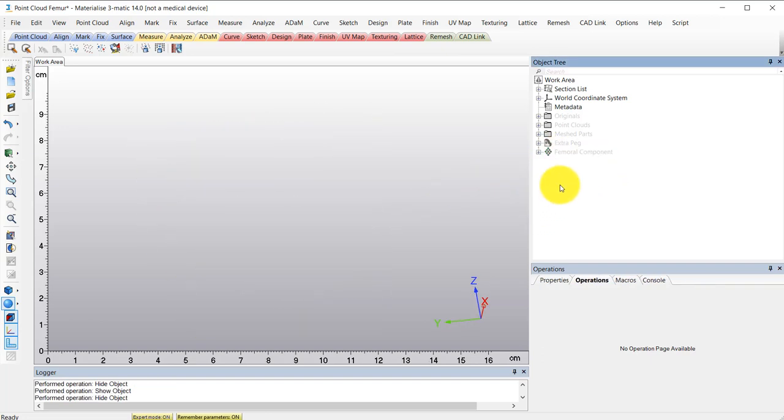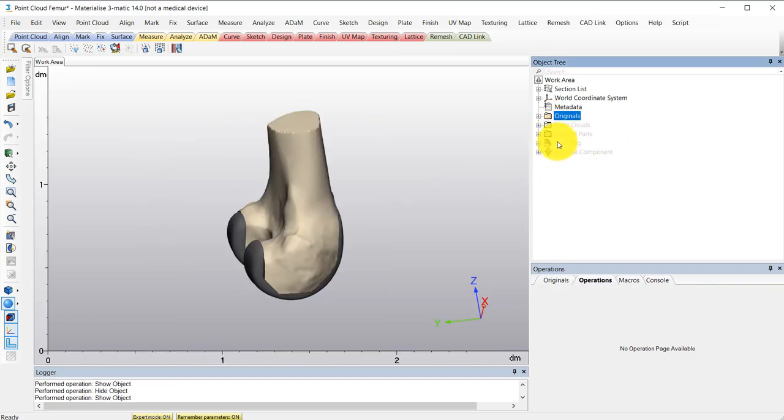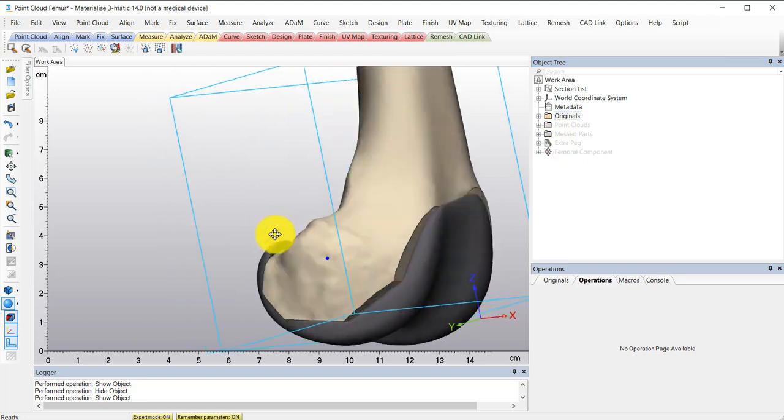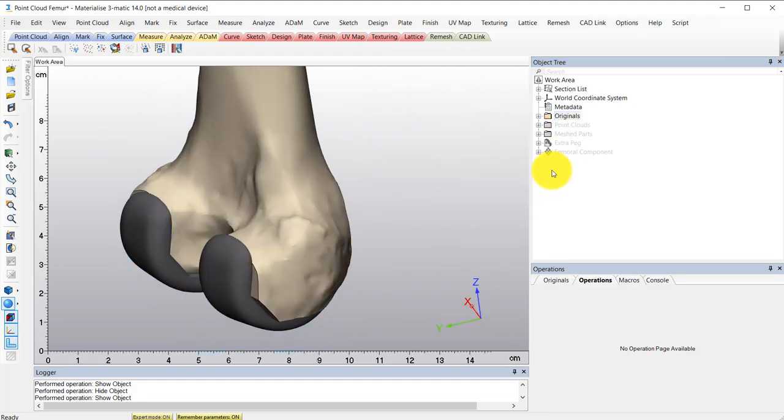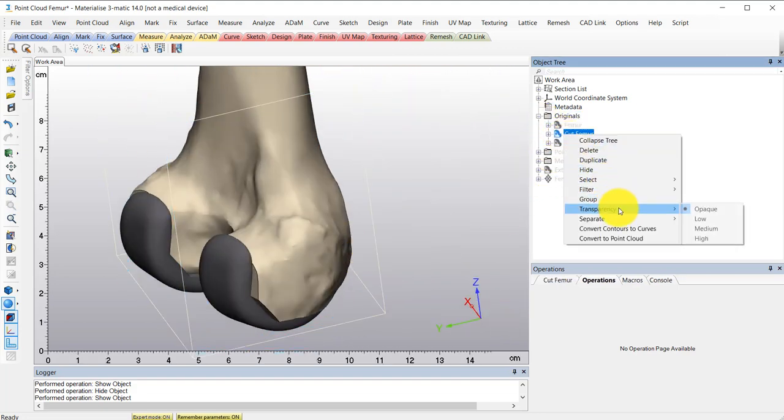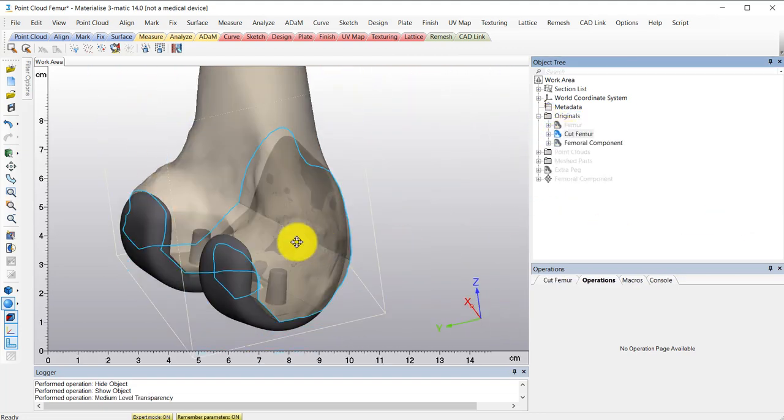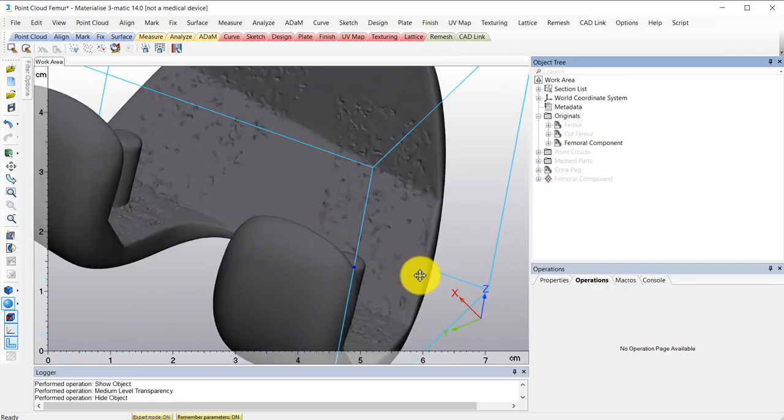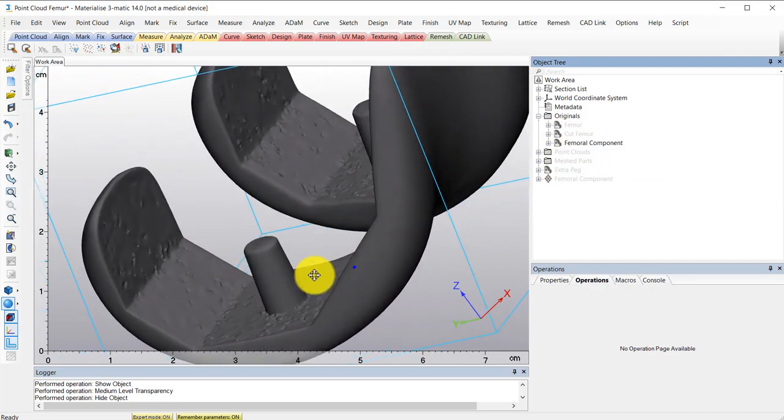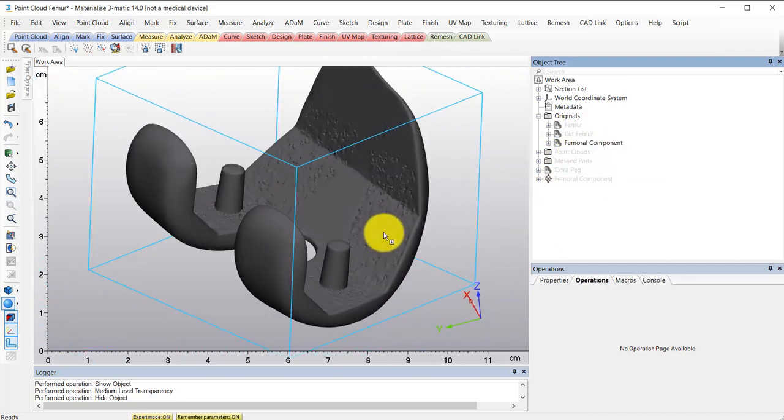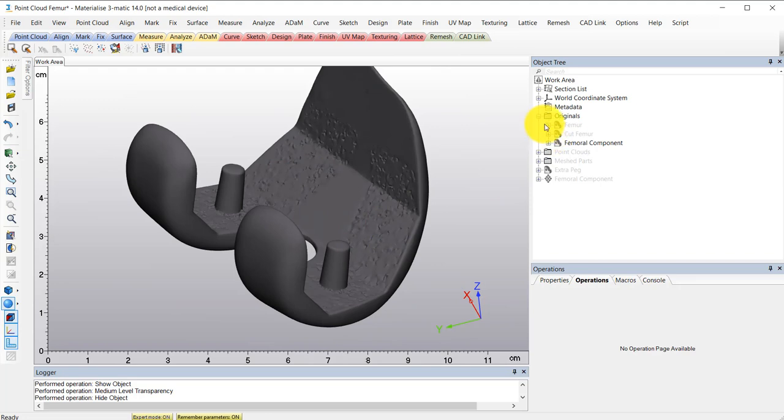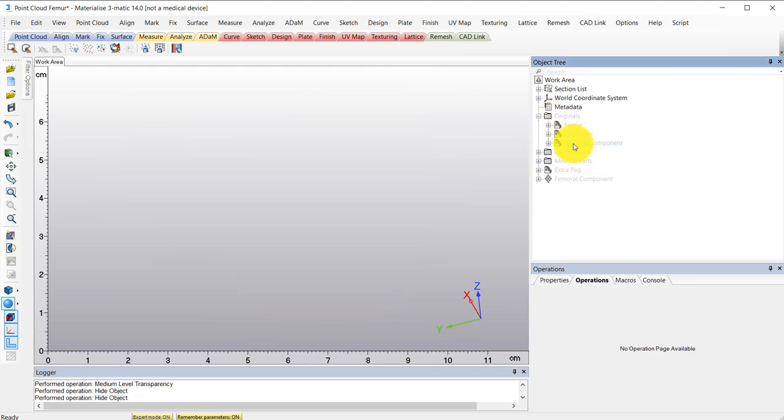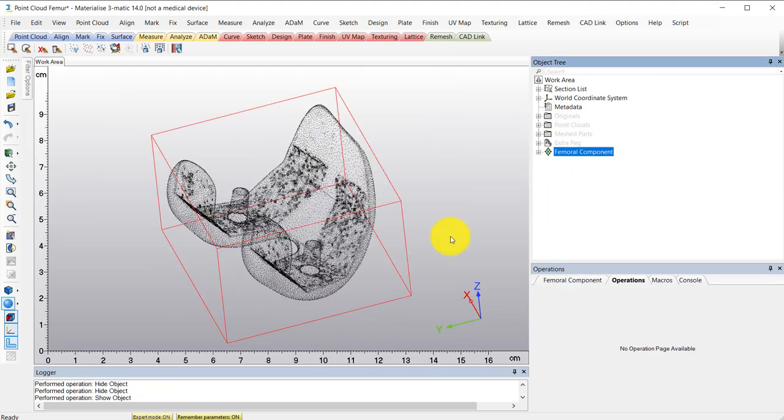Now I've kept the originals here so you know what this should end up looking like. This is a femoral component. This device will fit onto the femur and has this kind of texture or porosity to ensure healthy bone growth and acceptance of the device by the bone.